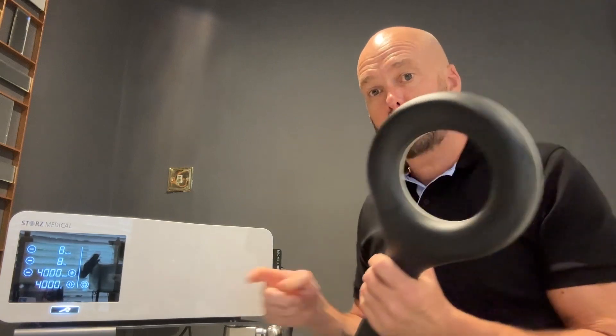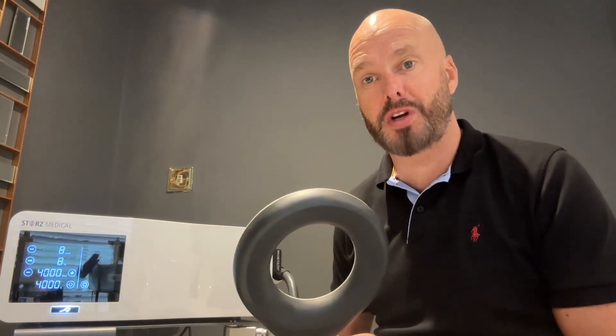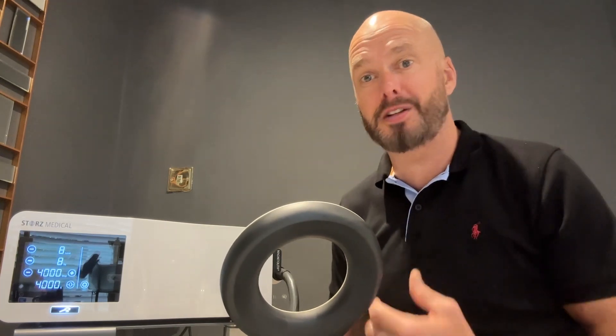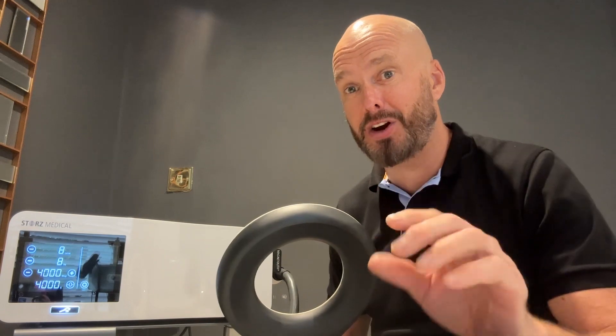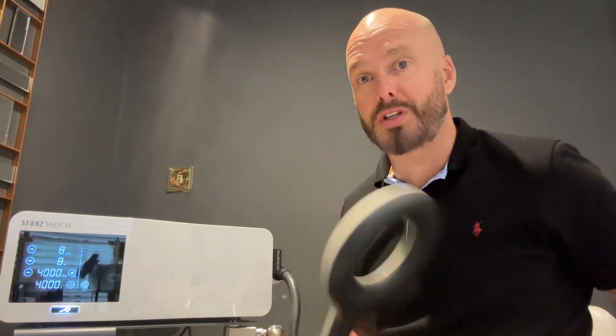It's this wand here, which has a magnetic coil that goes through it. First things first, if you're safe to go into an MRI scanner, you can have this treatment. If you've got a pacemaker, cochlear implants, anything with batteries — importantly, any credit cards or any kind of cards with a chip, don't put it near this. No Apple watches, no phones.